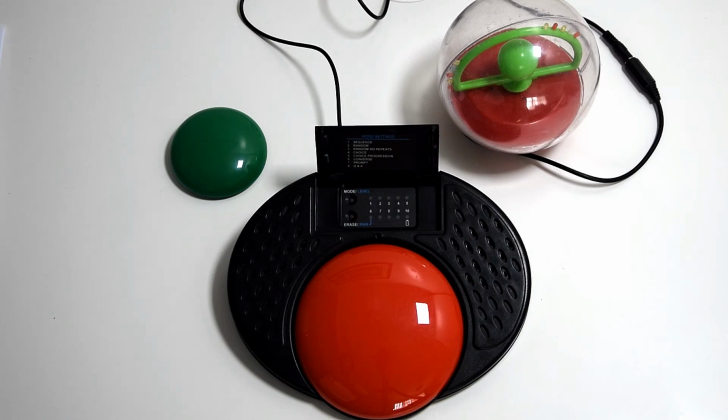So it does flip around a little bit, so the external switch becomes a question, the first recording, and the main switch becomes the answer. But also to show how this might work in setting, I've set up a toy output here as well, so that in creating the right answer you can get a toy output. Toy output can be used across a lot of different modes within the Smooth Talker, and it really is down to whatever you'd like to use that for. So do look through the support documents, the instruction manuals, if you want to sort of play with toy applications or play with outputs where it's a kind of reinforcement situation.